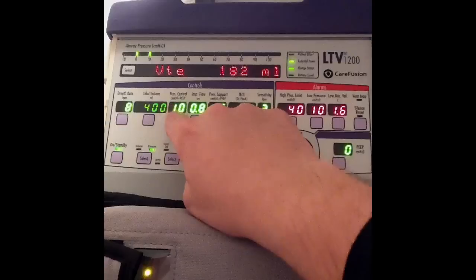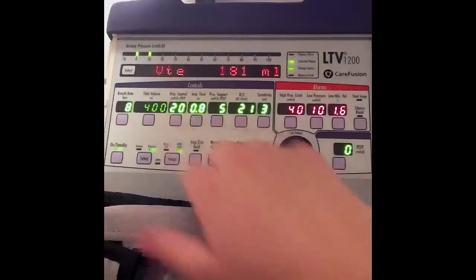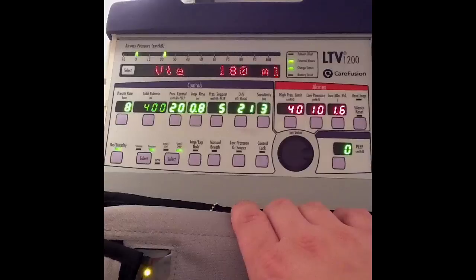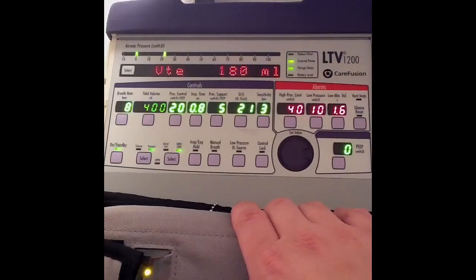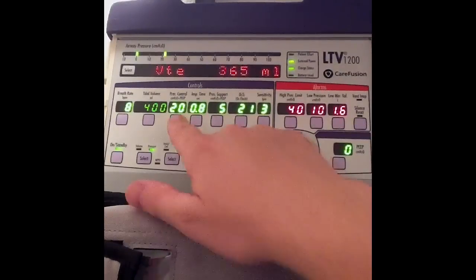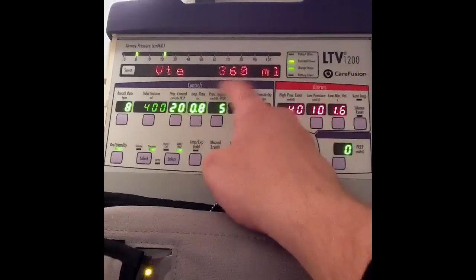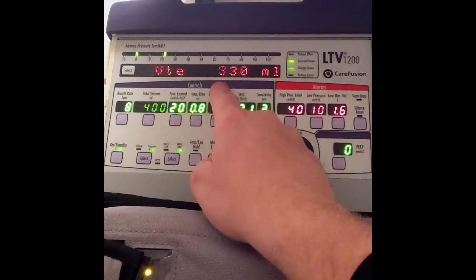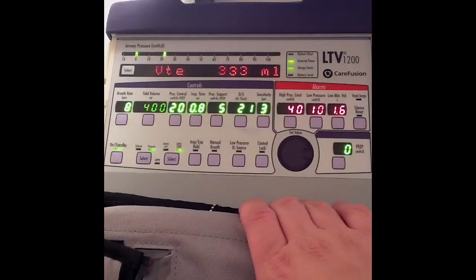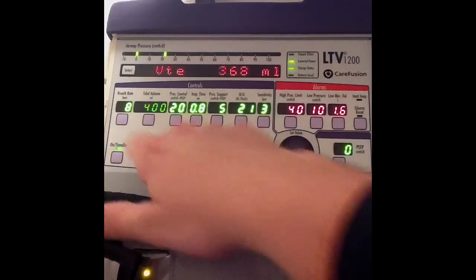Now I'm down to 182. I'm going to increase it back to 20 again. My pressure is set at 20 and we should see an increase in tidal volume. That's how pressure control ventilation works — I'm no longer setting a volume, I'm setting a pressure. The volume delivered and exhaled depends on the pressure, and of course also on airway resistance and lung compliance. That covers switching between modes and between volume versus pressure control ventilation.